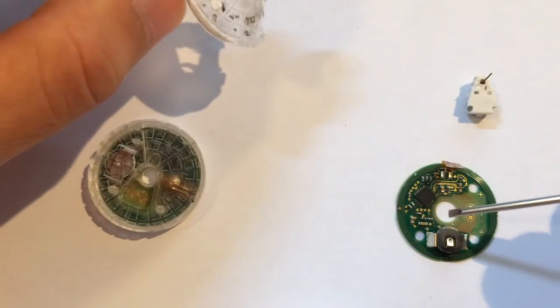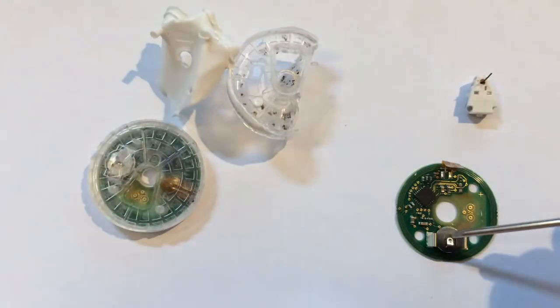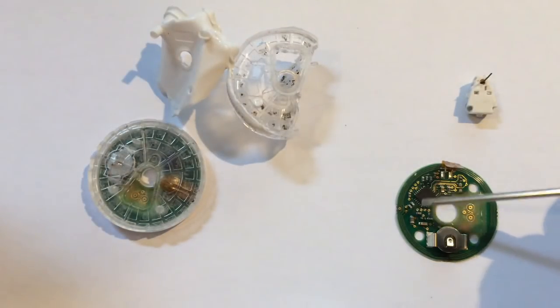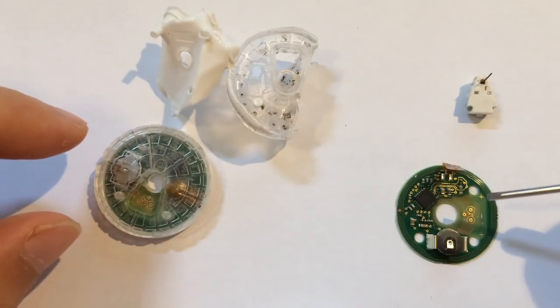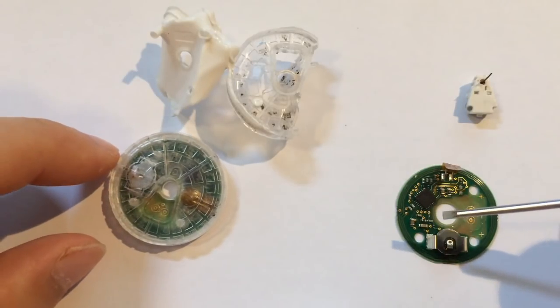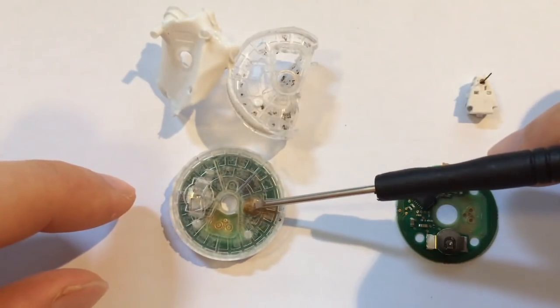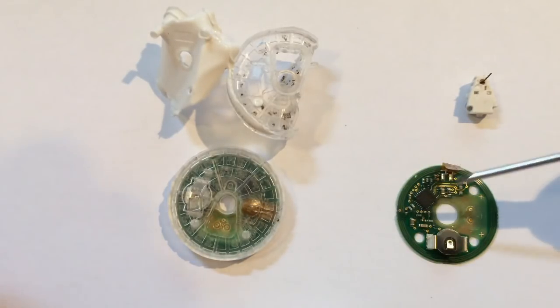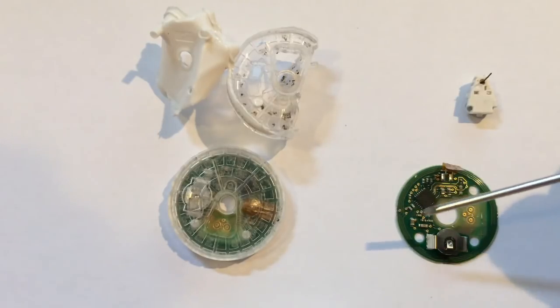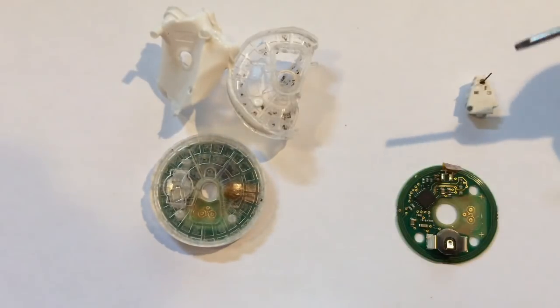On the board here, we've got the button battery, the main power supply for this sensor, the single chip sensor, and then a temperature sensor. And that just senses the temperature of basically the electrode or the area surrounding. It's got a little touching the plastic here. And it just gives the high temperature warning. I don't know if there's a low temperature warning, but there's a high temperature warning if the sensor gets too hot and it won't let you download.